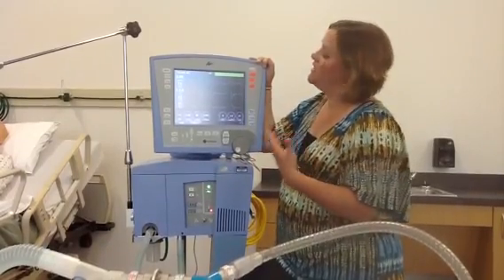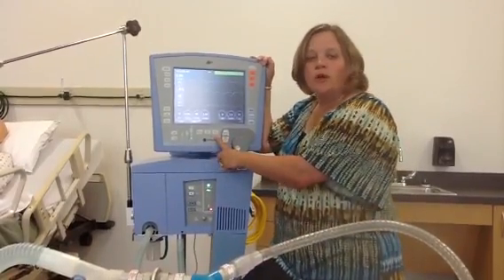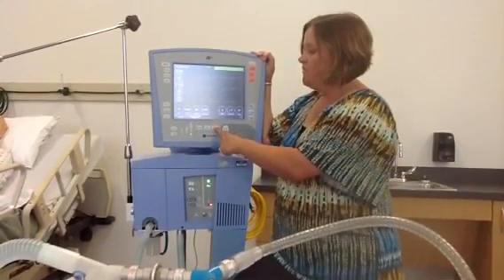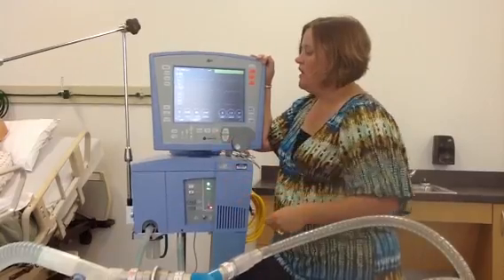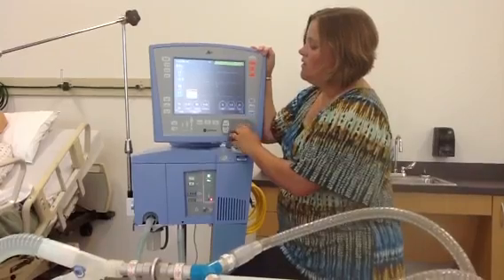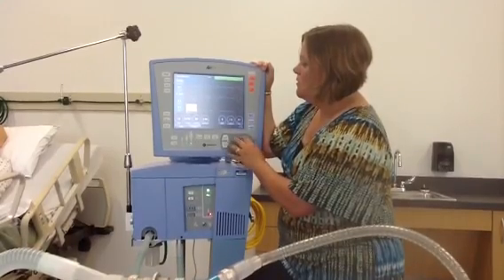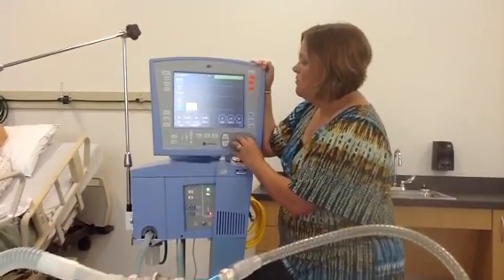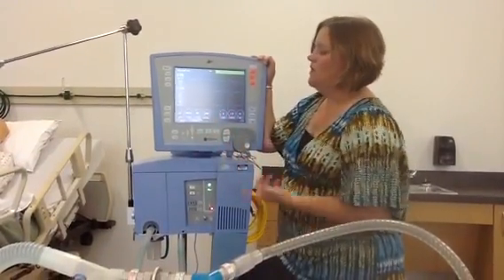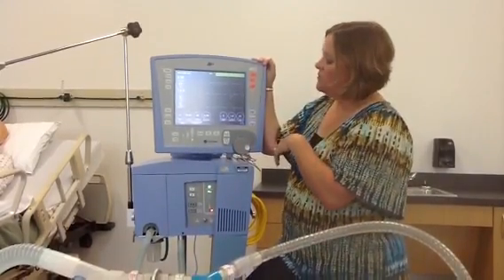If we're standing in front of a ventilator and we see that our flow does not return to baseline, we'd want to do an expiratory hold to see if the patient is air trapping. If you hold that, it gives you your auto-PEEP. Right now my ventilator is reading an auto-PEEP of 6 after I did that expiratory hold.